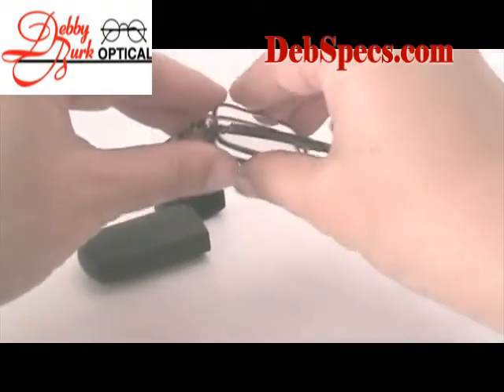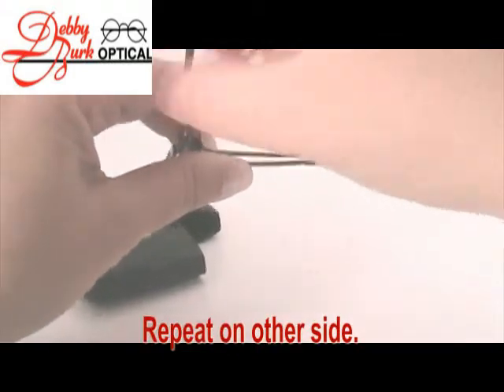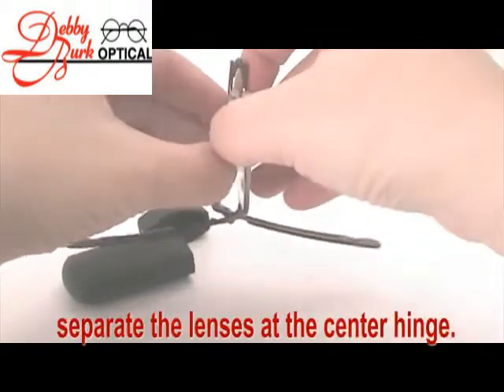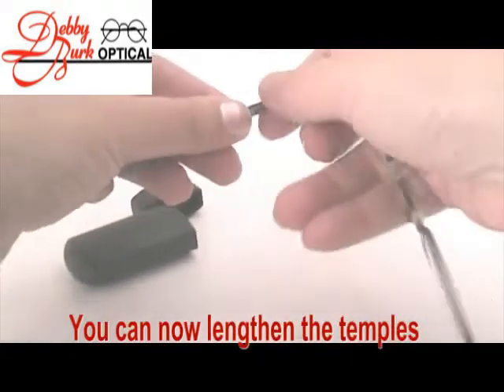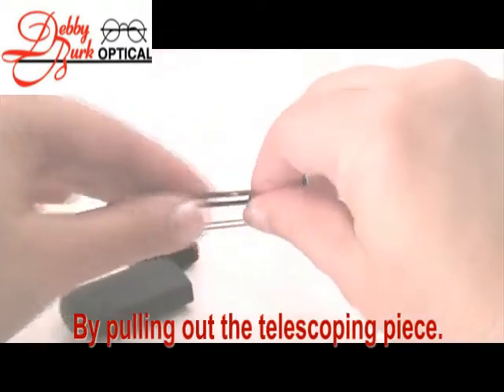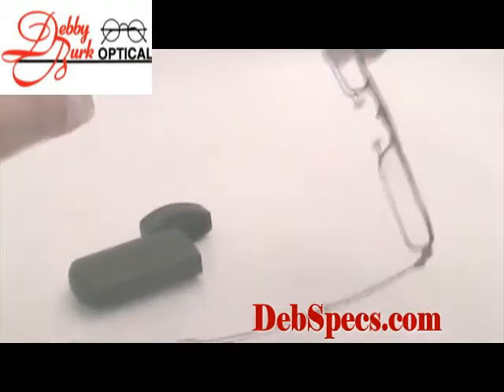First, open up the stems away from the lenses. Once both arms are open, find the hinge in the center of the eyeglass frame itself. The beauty to these glasses is the telescopic arms — if you pull, they become almost twice as long.